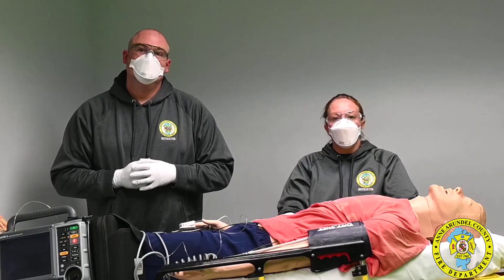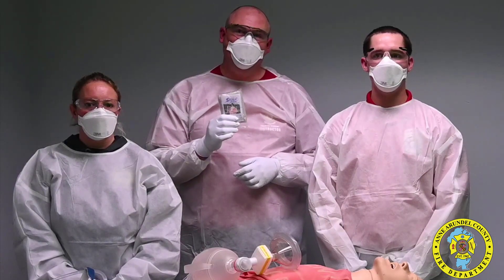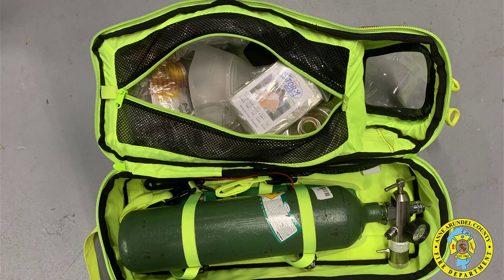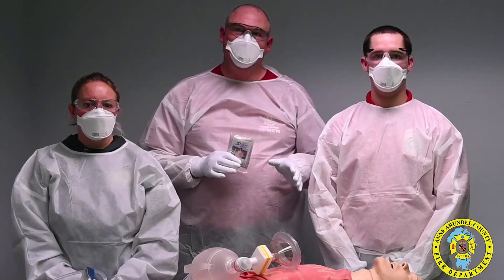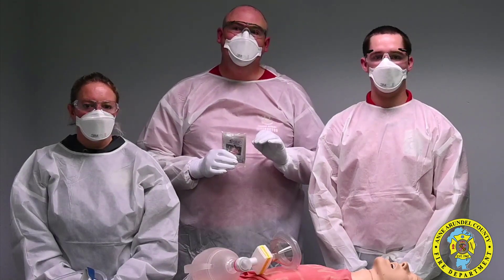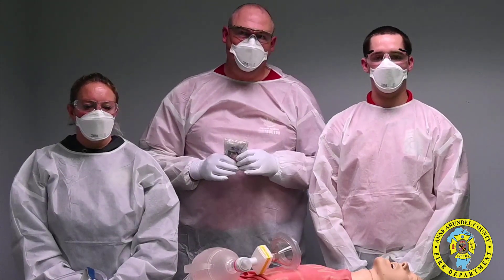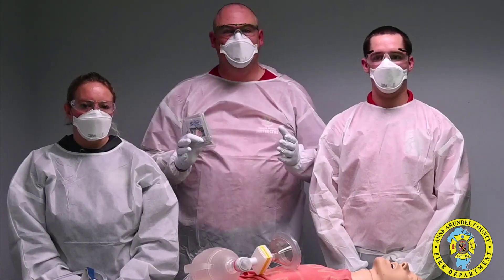Let's show you what that should look like. The protective poncho will be placed with every bag valve mask, so wherever there's a bag valve mask you should find a poncho. It's also important to understand that anytime a patient is being ventilated, first and foremost you must have proper PPE — your gloves, your glasses, your N95 mask, and your gown.